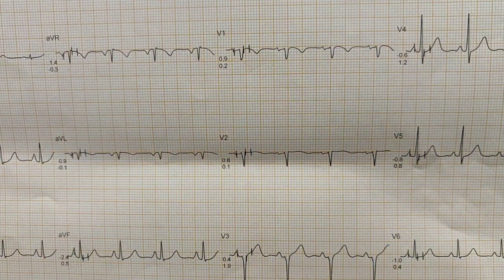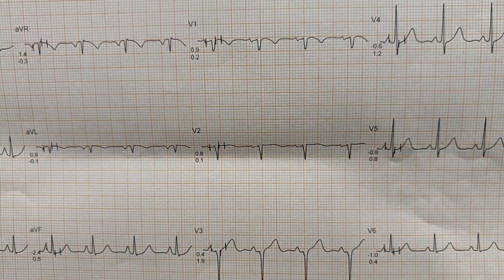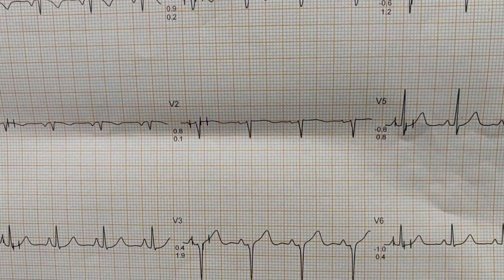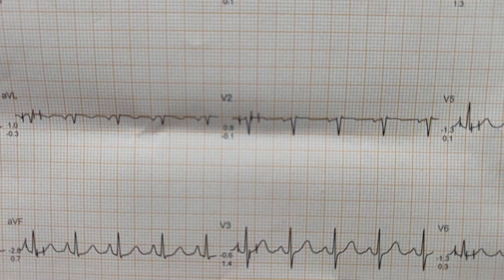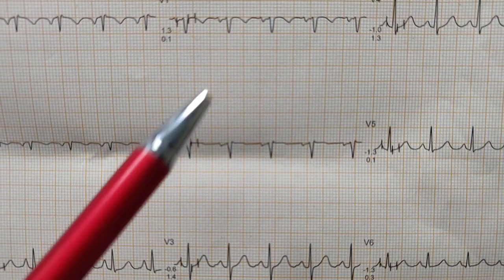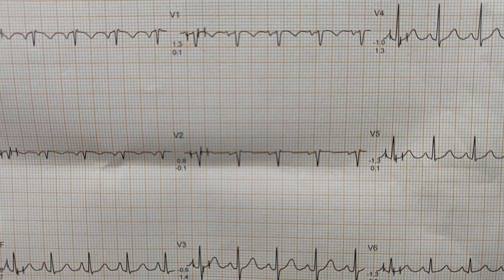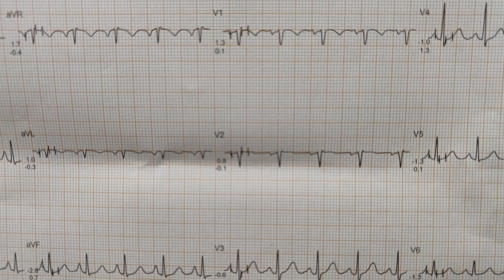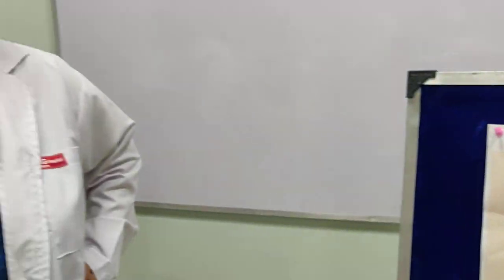This finding can be because of bronchitis, but it can also be interpreted as old anterior wall myocardial infarction. I noticed that the chest lead V3 was placed directly below V2, so we corrected the chest lead placement. Now you can see V1, V2, but then in V3 you get a nice R wave. V1 and V2 having a small R wave is acceptable in a case of chronic bronchitis, but V3 now shows a good R wave. So this patient in the first ECG would have been diagnosed as anterior myocardial infarction, but just by correcting the leads this doubt was cleared well in time.